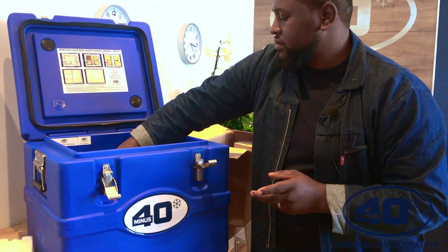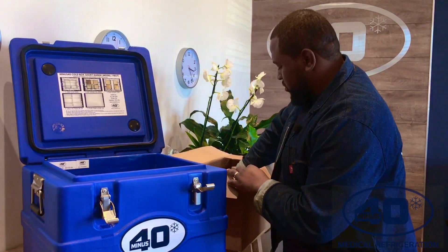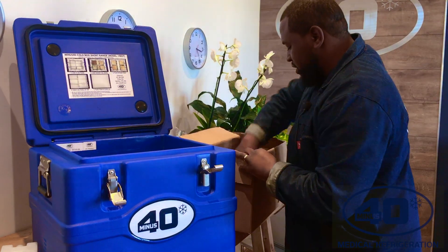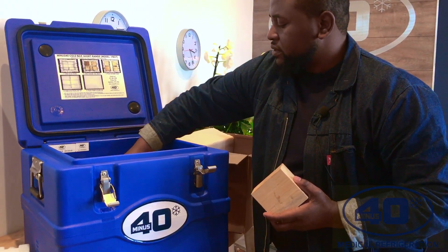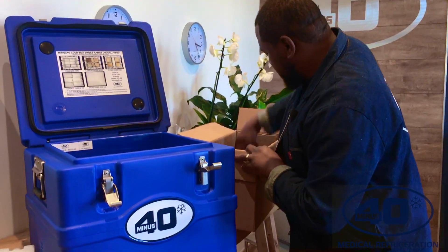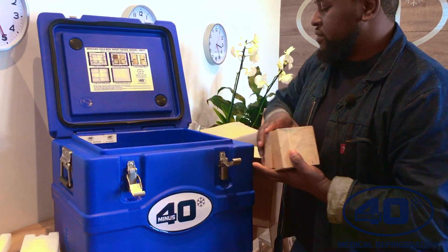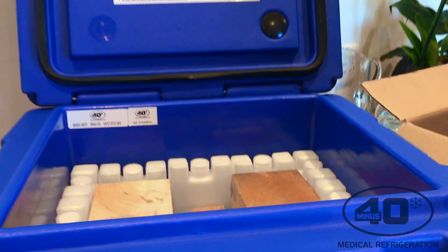So one block here is one liter. This block is also another liter, which makes two liters. And then the next one makes it three liters. Then there's the fourth one, which makes four liters. And then each of these is half a liter, which is going to make it five liters. I still have two liters to go. My last blocks are one liter each, then half a liter, which makes two liters — and then six, and then seven liters. As you can see the setup from the inside, I now have my seven liters.